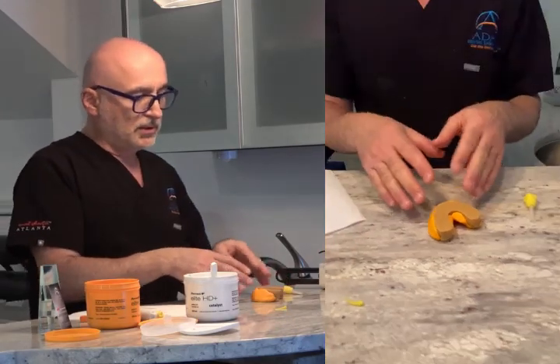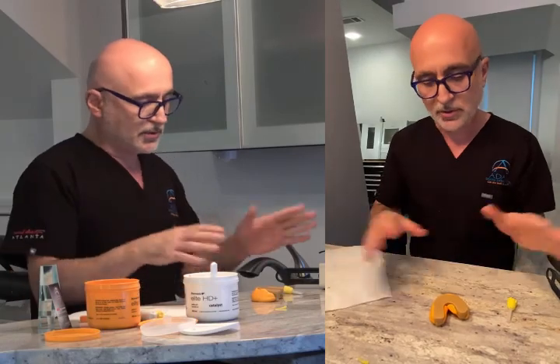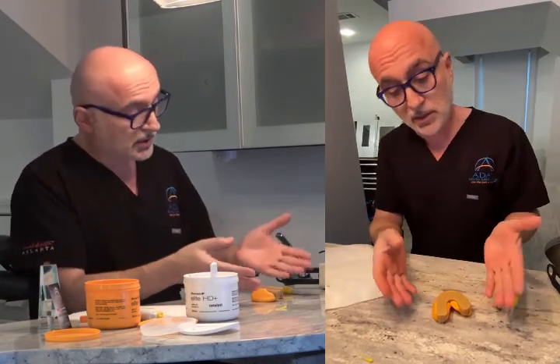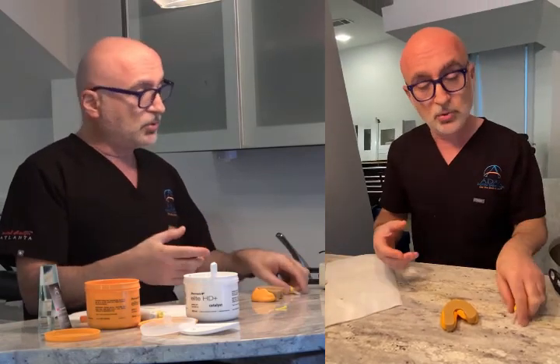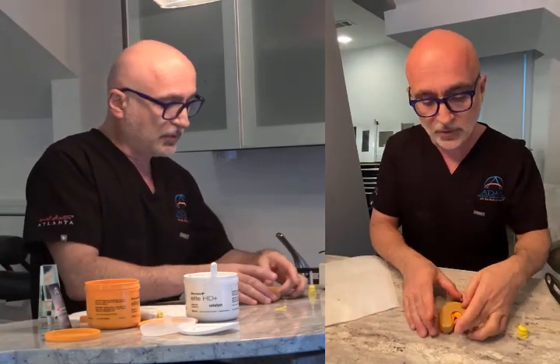I don't normally put anything in a pressure cooker. Some people use a silicone index and put it in a pressure cooker — this is too complicated. This is simple. Anybody can do it: assistants, technicians — anybody can do this popping smile preparation before the patient comes.